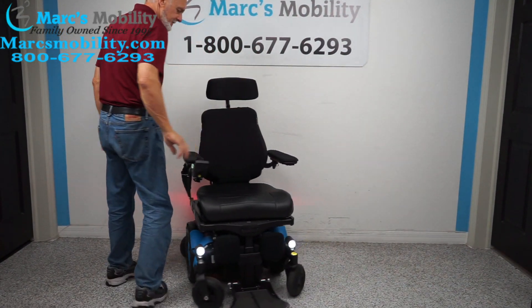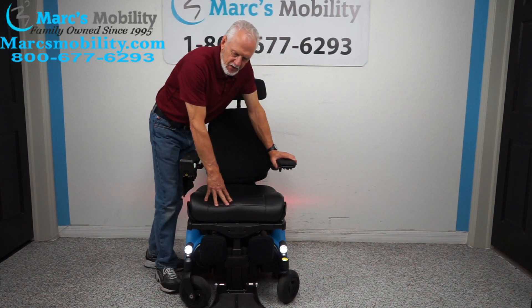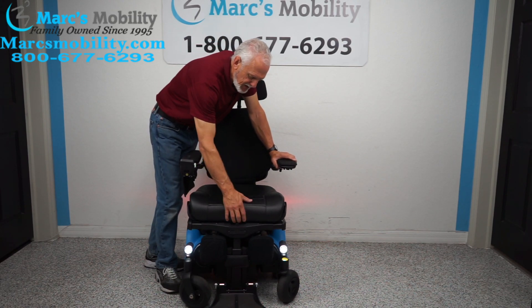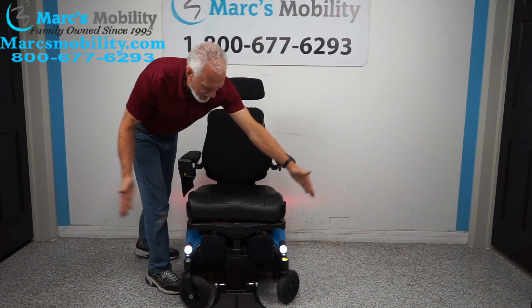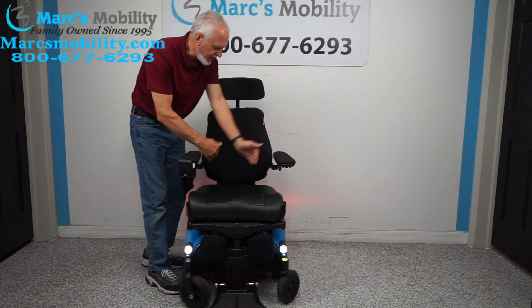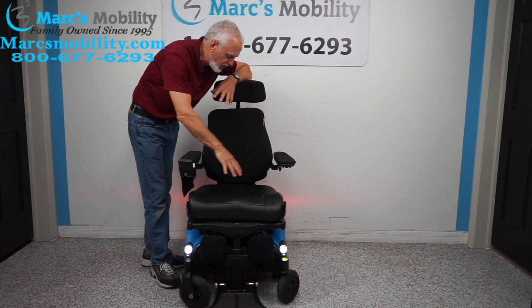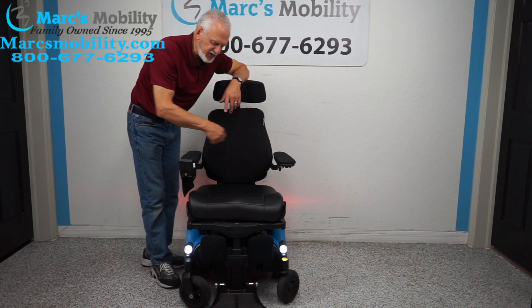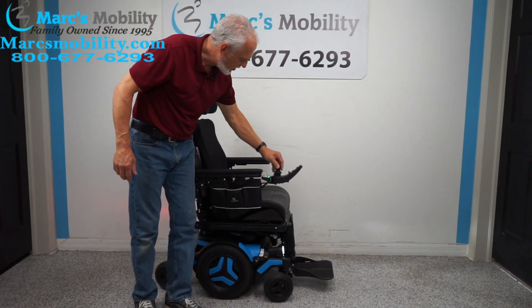The seat on this chair is 20 by 18 inches. Everything is adjustable — if it's too small or too big, we can take this cushion right off, expand the railings in or out, change to a smaller or larger cushion, and adjust the arm rest. If this is the chair you want but it's not sized the way you need, just let us know — we have a pile of cushions and seats we can work with.